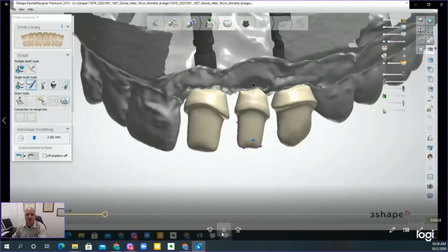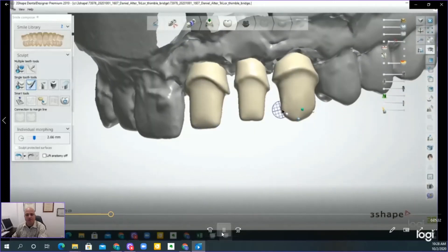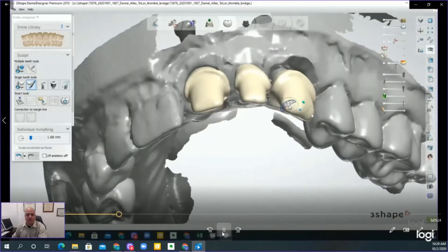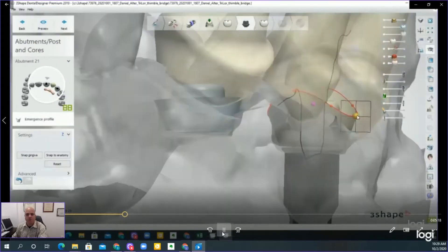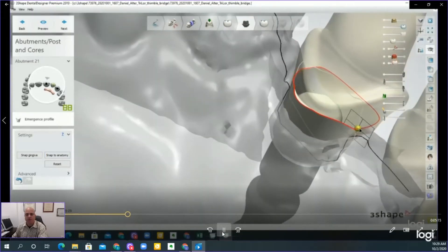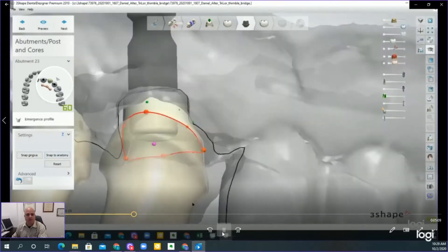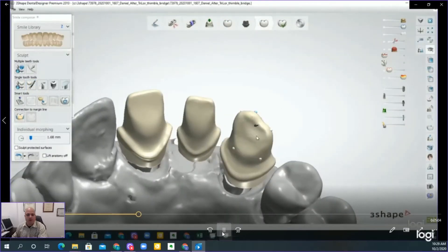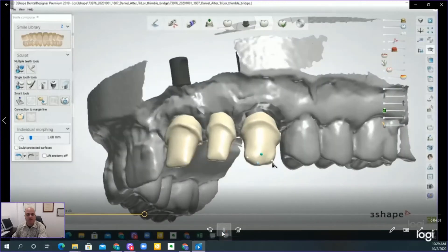It is helpful in larger cases to have a ghosted denture or temporary so you can see where the preparations should align. As you see in the video, you can make adjustments as necessary. You try to use the thimble for what it is — make sure it's parallel so that it doesn't give you any challenges later when inserting the crowns. Validate and hide the contours or the emergence of your implants, and thin out the incisal areas wherever needed. Adjustment-wise, it makes it so much easier.